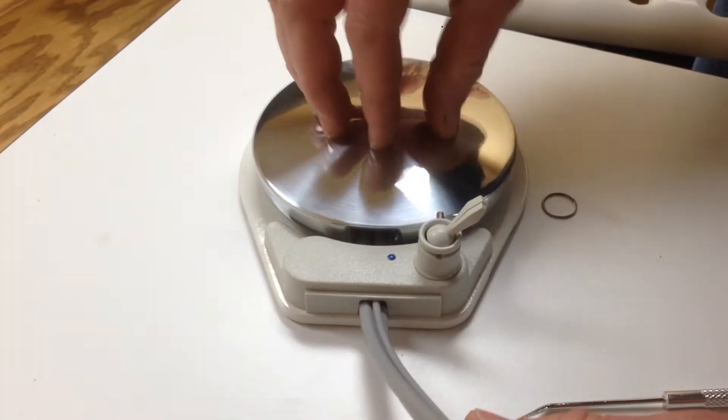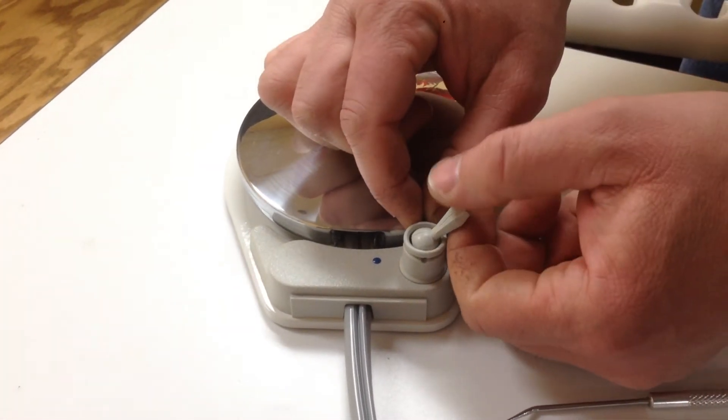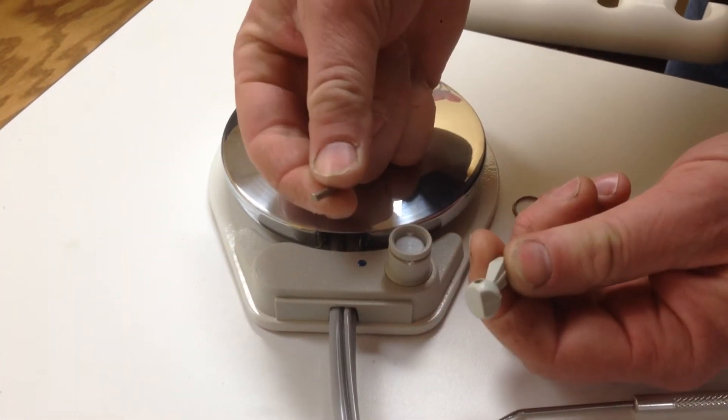Always make sure the air is off to the foot control before we go much further. Forgot that part. Take the pin out, toggle comes right out.